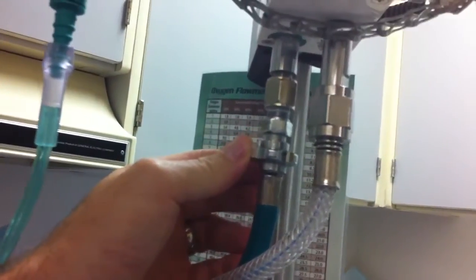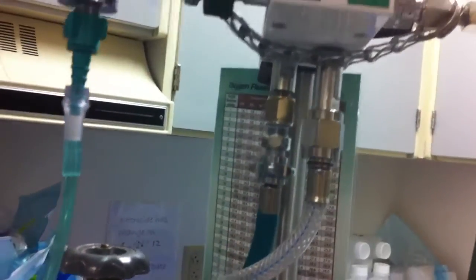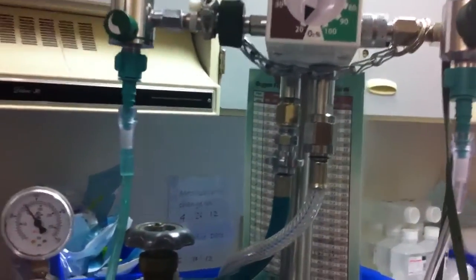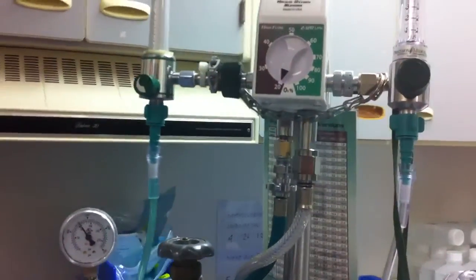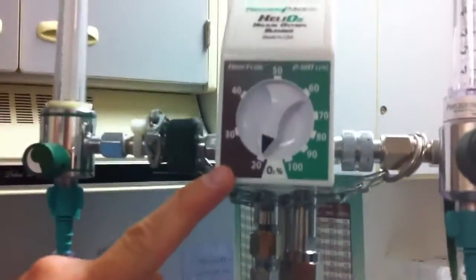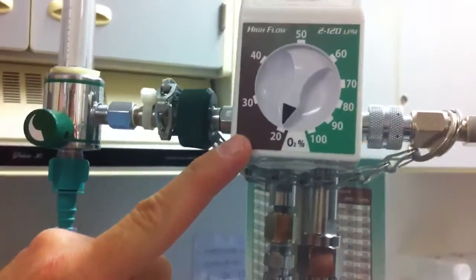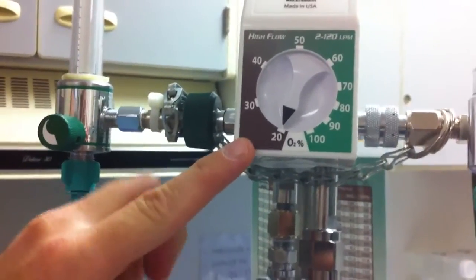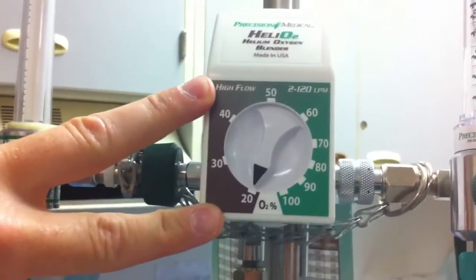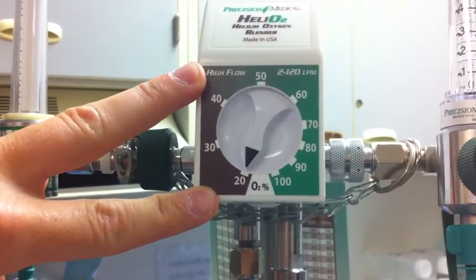For this purpose, we just have it connected to an E-cylinder, and it's set up and ready to go. If you look at the dial right here, you have 20 to 100%. And for use on Heliox, you can see the brown area is 20 to 40. That's really where we want to keep it for use in Heliox.